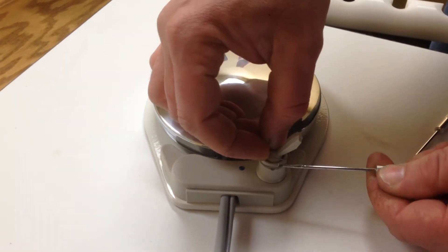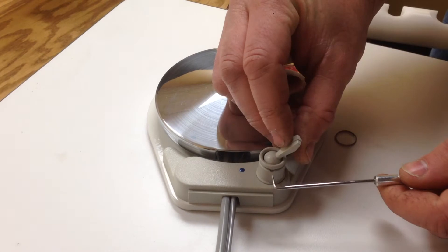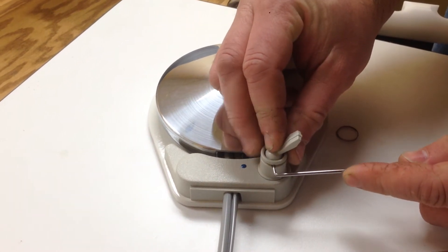It's looped around a couple times. There we go, that comes out. Then we push the pin out, holding on to the toggle.